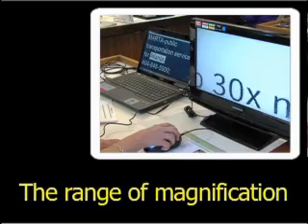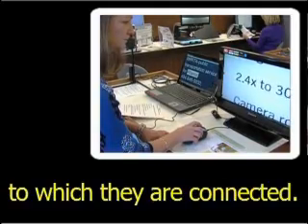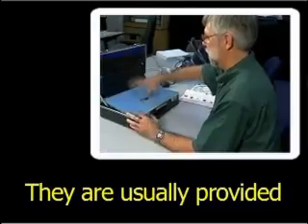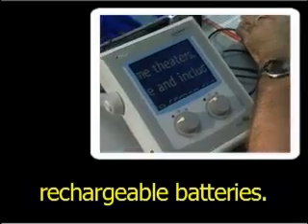The range of magnification for these models is determined by the size of the TV or monitor to which they are connected. They are usually provided with a convenient carrying case and operate off rechargeable batteries.